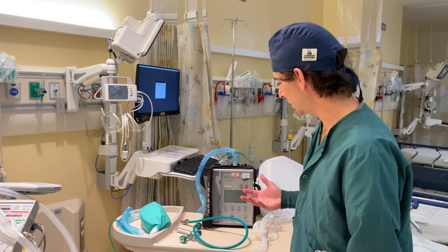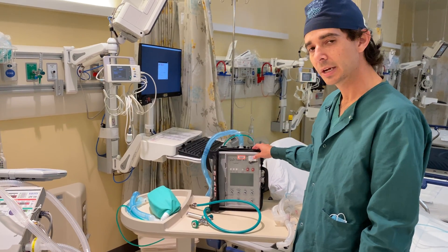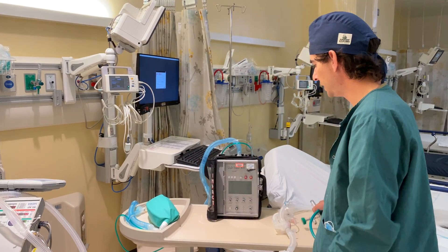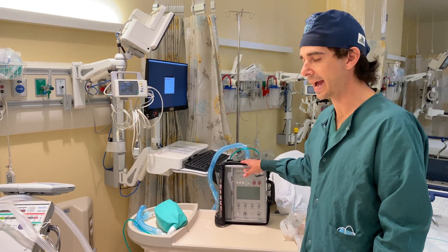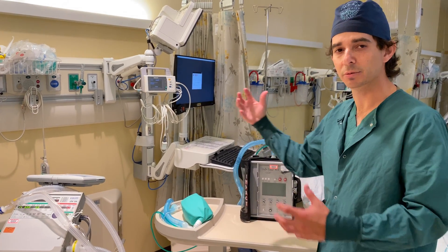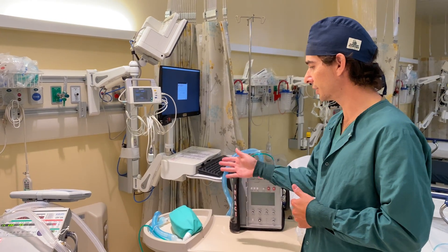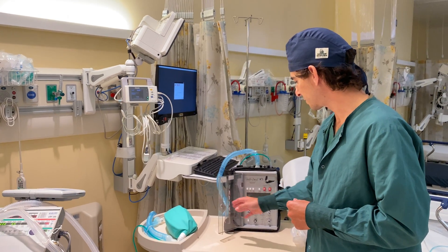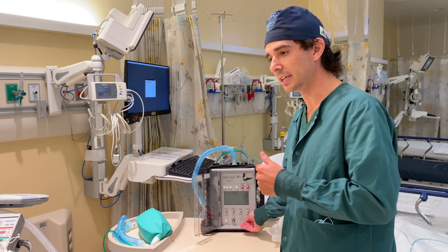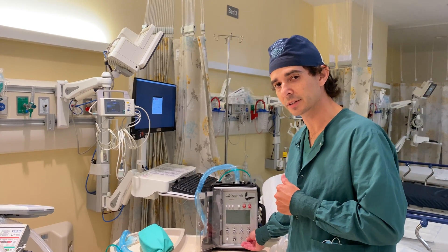The last bit of equipment I'm going to show is another transport ventilator. This is the Eagle One, a relatively older version of the Zoll 731. This ventilator, much like the LTV, can function without being connected to a gas source or a power source. It's a compressor-driven ventilator, which means it will suck in air from the ambient room at 21% oxygen concentration, compress it, and then deliver it to the patient. The display is relatively more simple, and because it's a compressor ventilator, it's louder than the other vents — this older model is markedly louder. Newer compressor-driven ventilators are quieter.